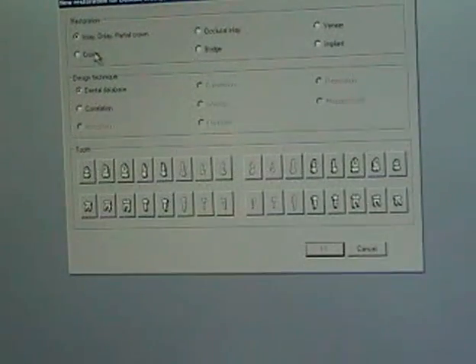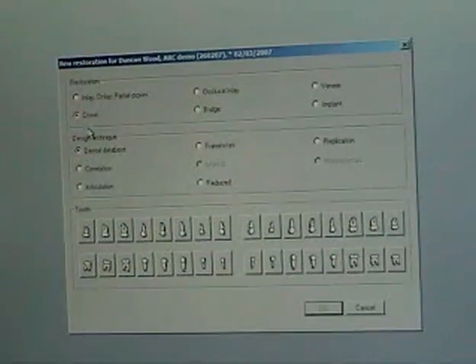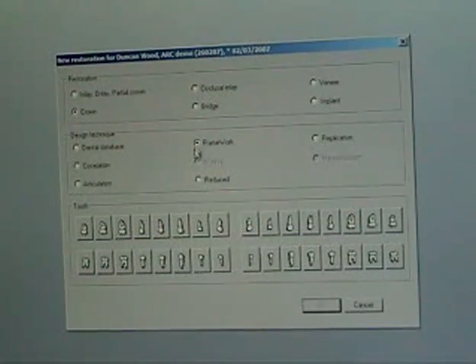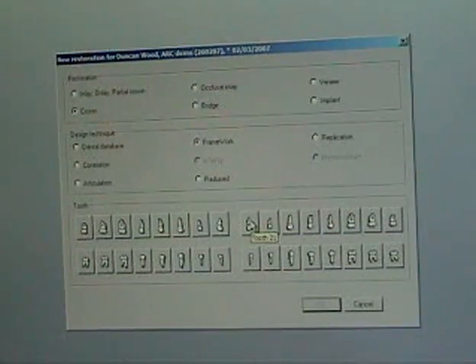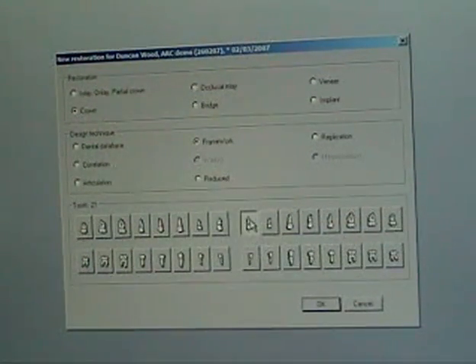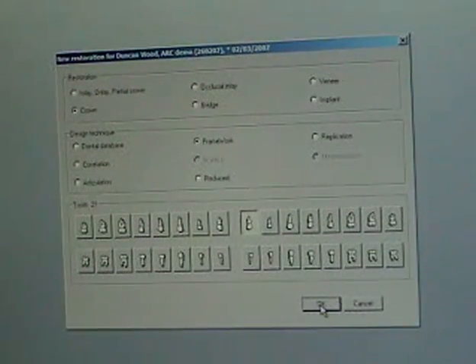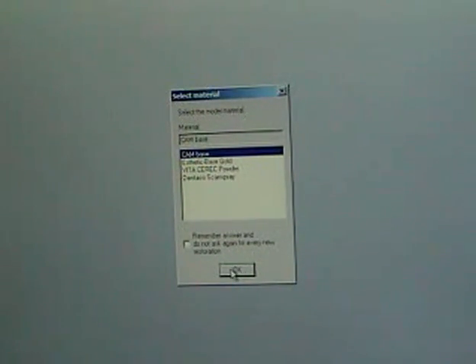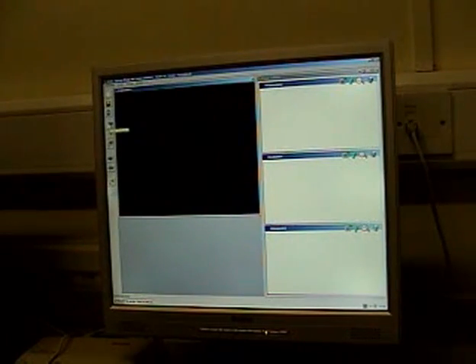So now you just tell the software package what you'd like to design. So we're going to produce a crown framework. So you select crown framework, select the correct tooth. This box is asking you what material you're scanning and we're using the cam-based material. So it's a scannable die stone.